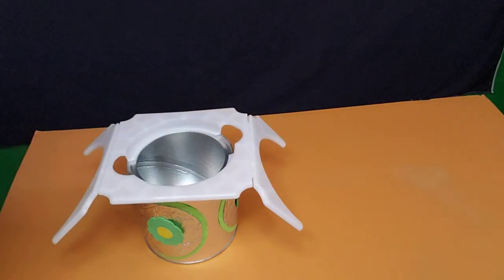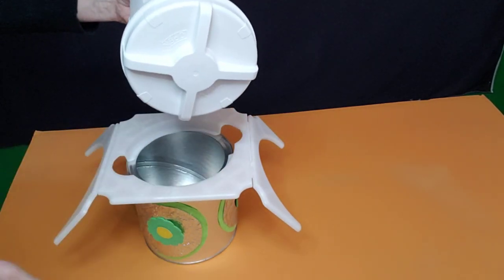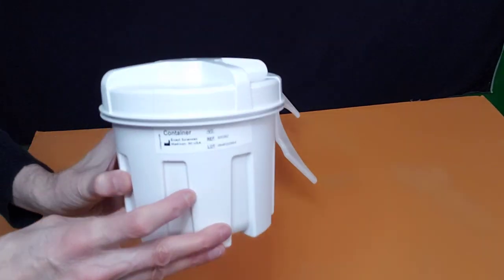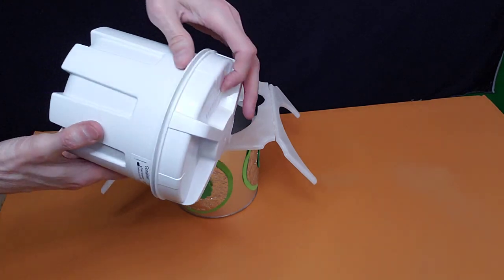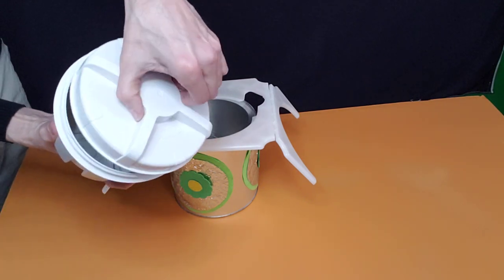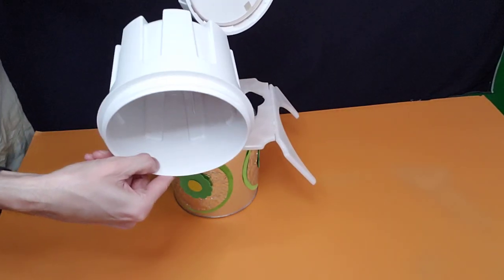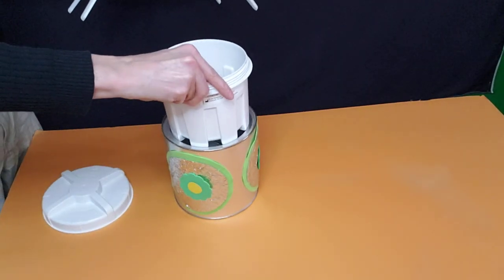Then we're going to take out the container. It has numbers and stuff on the side for the lab, and it says 'open' and 'close' with arrows on it — it's very tough plastic. Opening it up, that's where your stool sample will go. So we're going to take this container and put it down in the middle of the bracket.